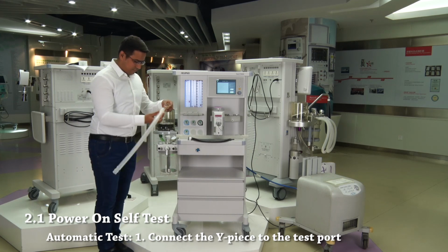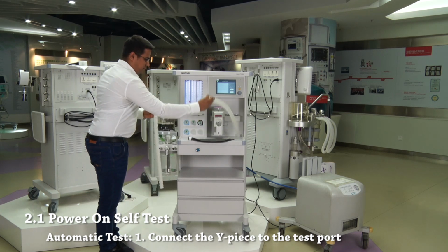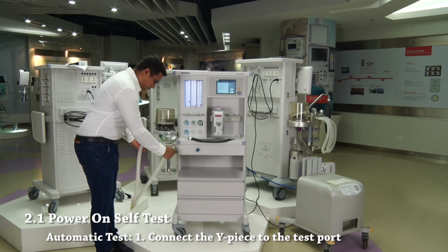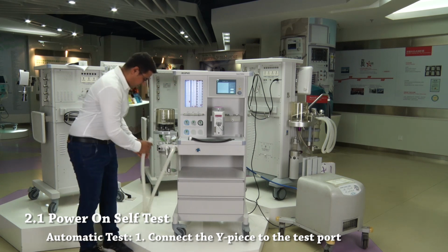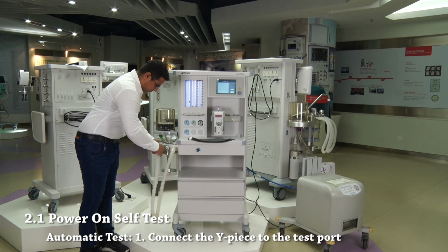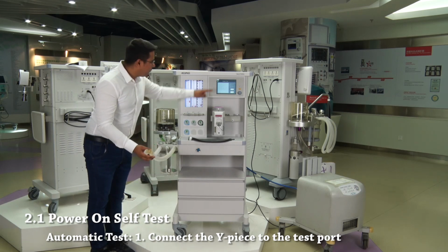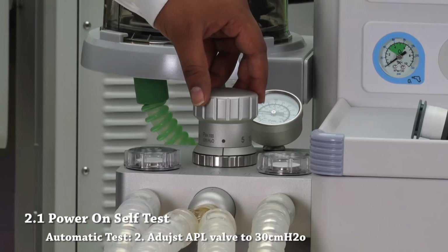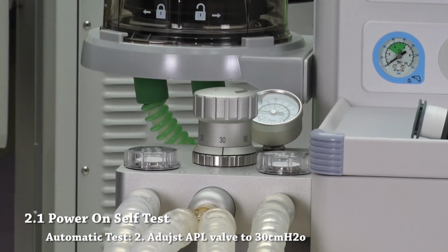Connect the Y-piece to the test port. Step 2. Adjust APL valve to 30 cm H2O.